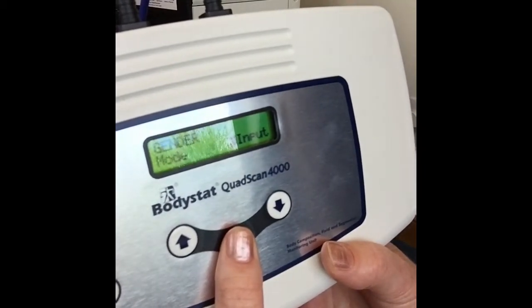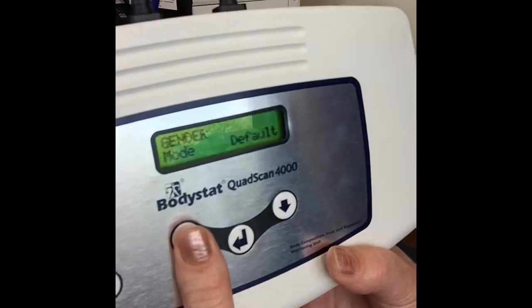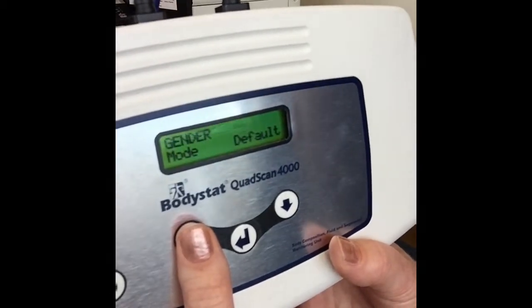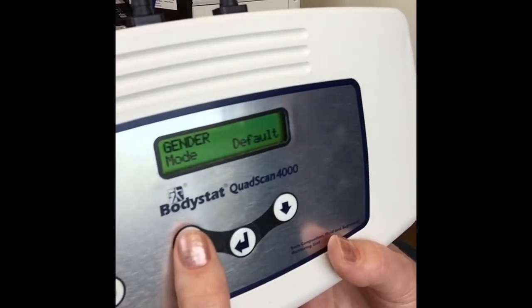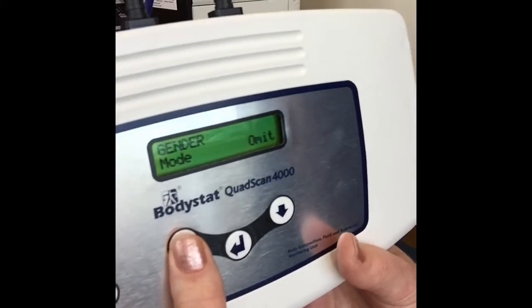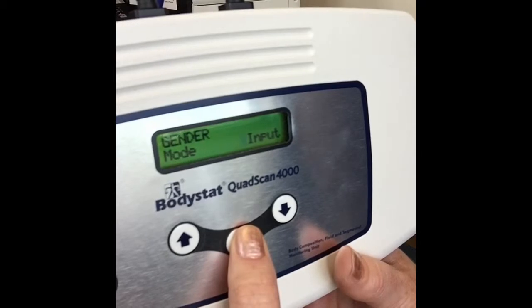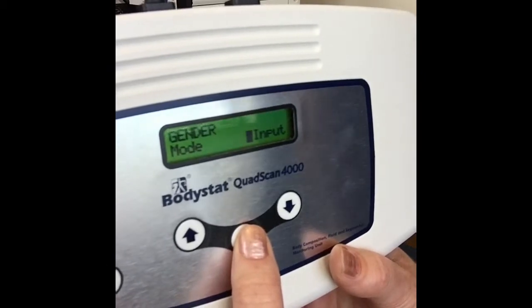However, if you know that all your tests are going to be male, you can have the option of defaulting all tests to male and it won't even ask you to key in male, nor will you have the option to change to female. Normally we just keep that as input data, so even though it defaults to male, you still have the option to change that to female at the time of the test.